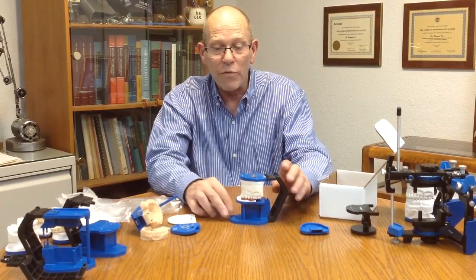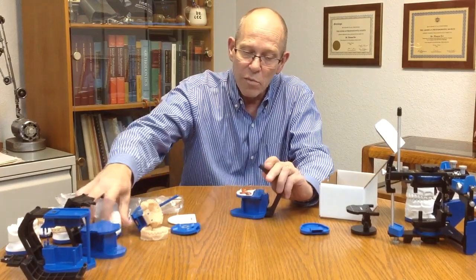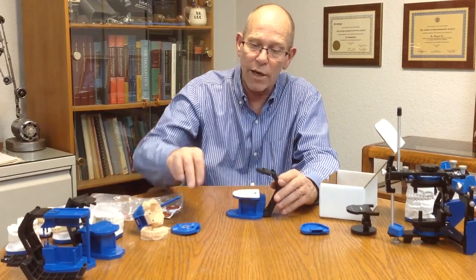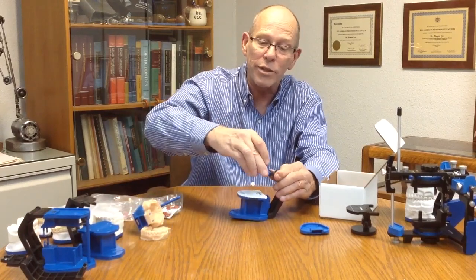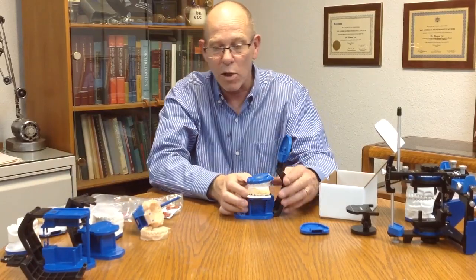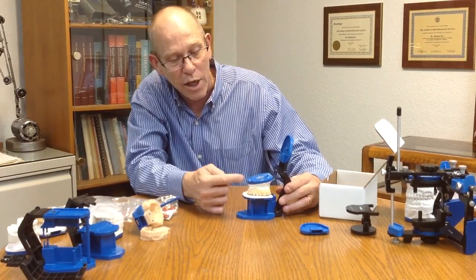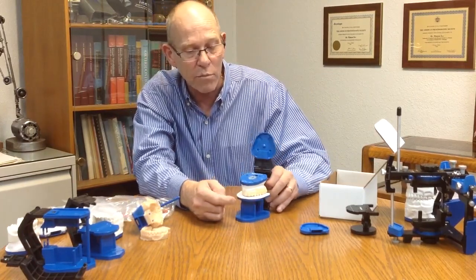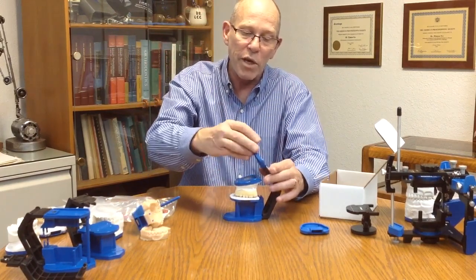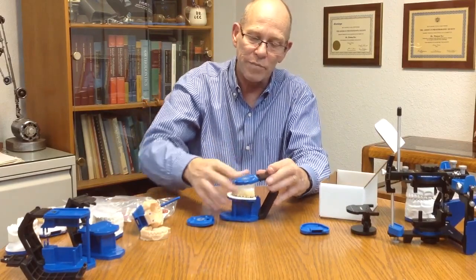Now if you want to do a standard functional mounting, we can do that also by removing the COI index tray, adding a standard waxing guide, again adding mounting plate to the upper. We can then take a model and set that onto the COI platform with the incisal edge at the 100mm line and the dental midline on the midline of the platform. We can add plaster to the mounting plate and the model, swing this around and make a connection to the model, which will then look like this.